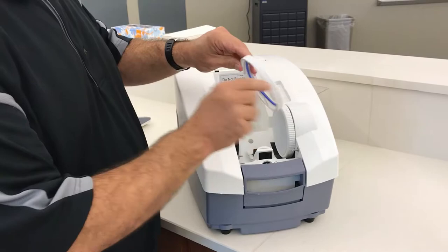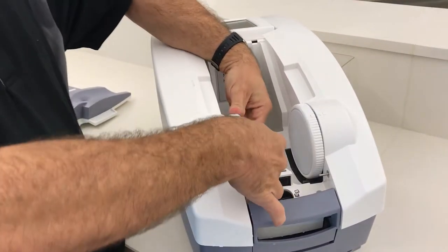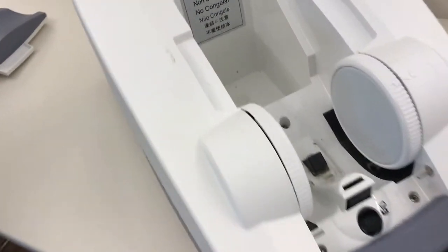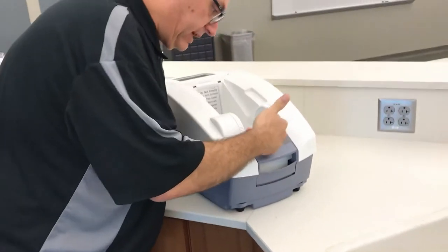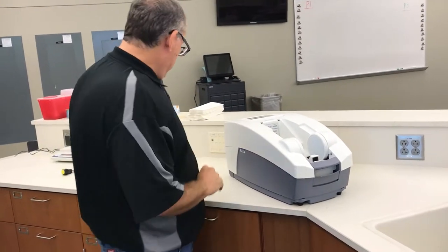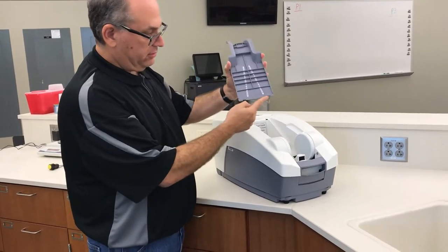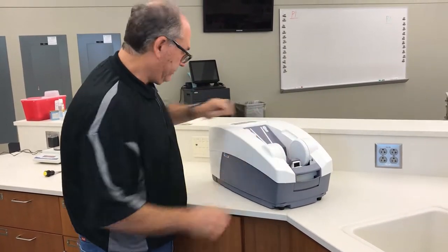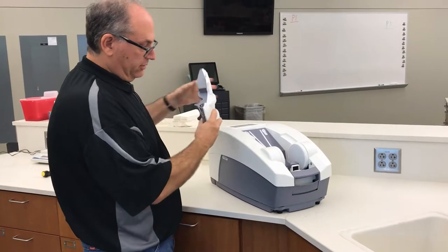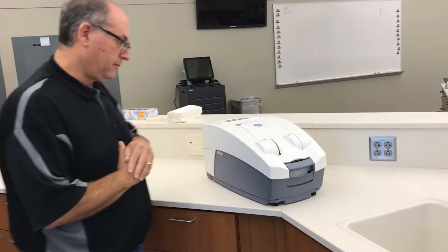Make sure the outer edge goes into that groove on the black part so it looks flat. Then replace the plastic rim — push the blue ring back inside, start with the triangle lined up with the lock part, push it in straight, and turn it until you feel a little snap and the triangle lines up with lock again. Visually inspect that both membranes are on there. Then put the phantom back in the holder, set the foot rest into its two clips, and slide the calf rest slots onto the two metal parts until it drops flat.